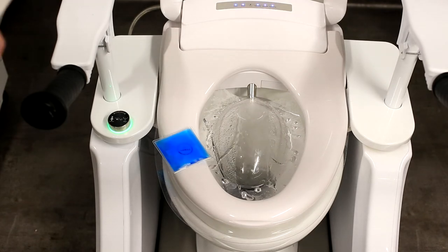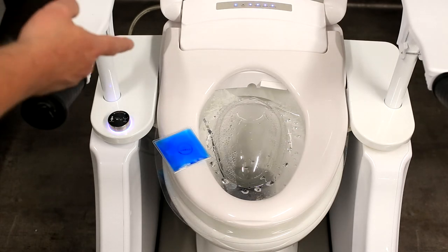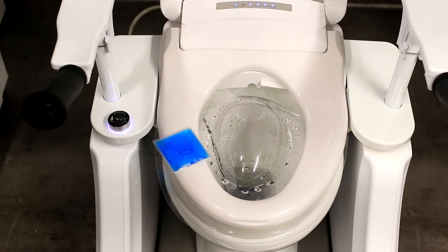Once you've finished, we'll stop the wash and then start the dry. A little flap will come undone and it's a nice warm dry, which lasts for about three minutes. But you can program it for six minutes, eight minutes, ten minutes — however long you want the drying process to work.